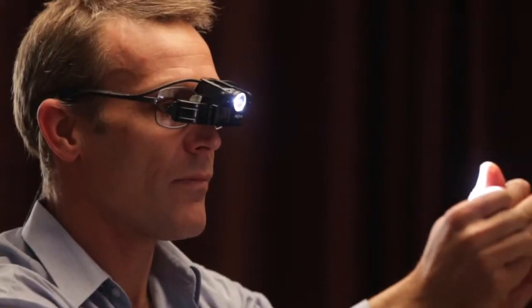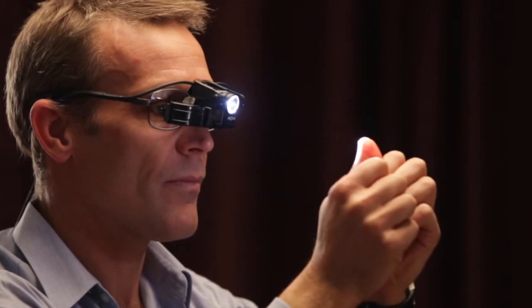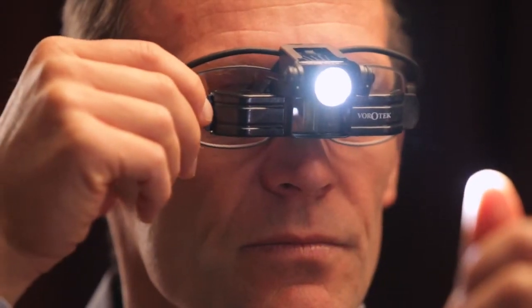use your thumbnail at arm's length and slowly bring it closer to your eyes. Switch between one eye at a time.